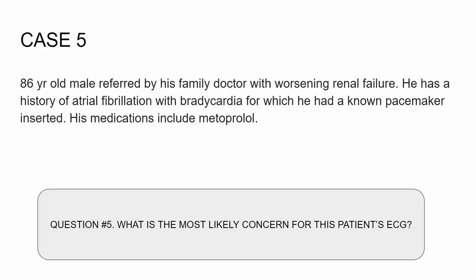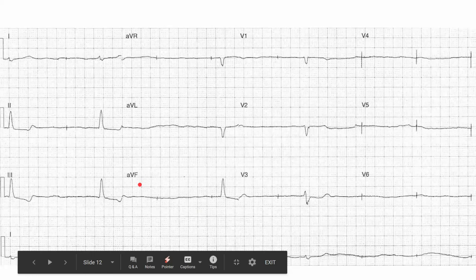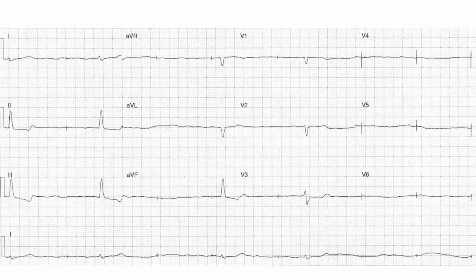Case number five: the clue here is this 86-year-old with a pacemaker. Anytime you see that in a question, you know it's probably going to be some problem with the pacemaker. Pretty slow rhythm here. Either this is super slow or we're missing something. But look at these little spikes. There's a little spike before a QRS, and there's a little spike with nothing. This little spike is supposed to be the pacemaker depolarizing the ventricle, and that's what's happening here, but it's not happening over here. So this is an example of a pacemaker failing to capture — meaning the pacemaker has failed to capture the depolarization of the ventricle.